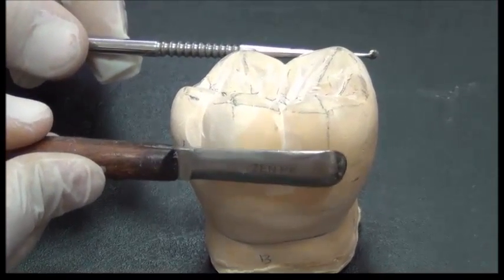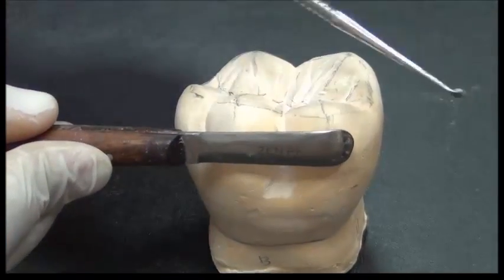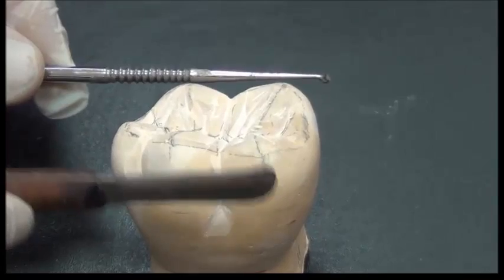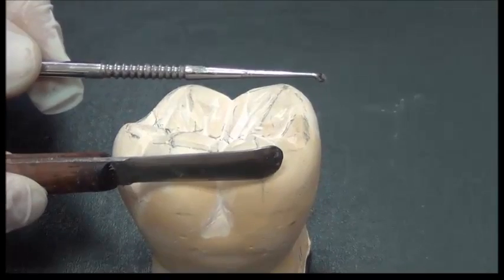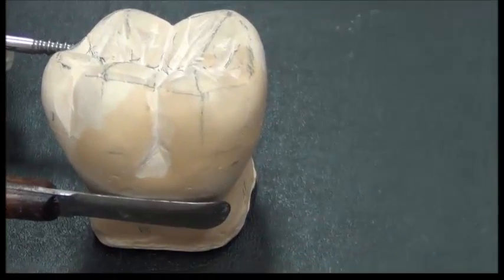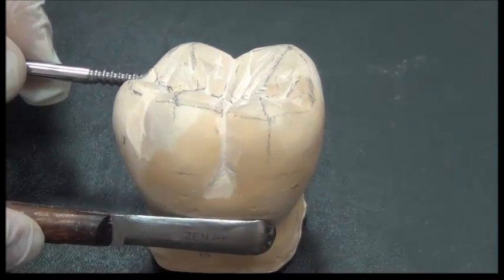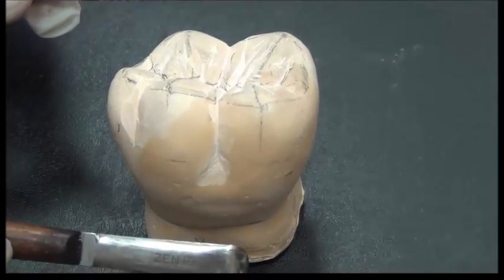If the clasp is located on this side of the tooth, it slips away during function because the sticky food in this area is taking the denture out of its place. So there's no grip, because each time this rigid metal component is moving, it simply goes out of the tooth. But if I place this metal component in an undercut, I will have a better grip on the tooth. Any vertical motion is resisted by the tooth being located firmly inside the bone socket.